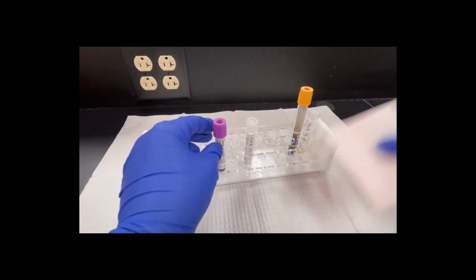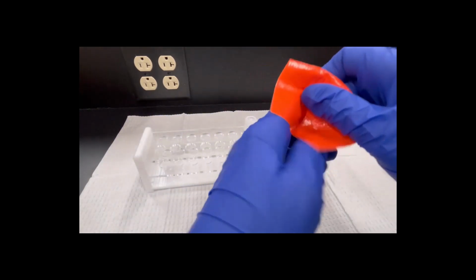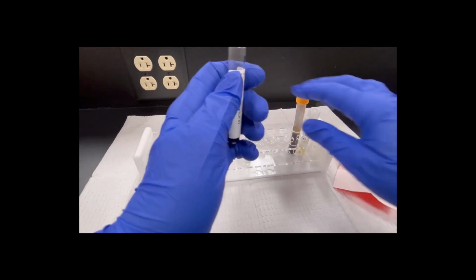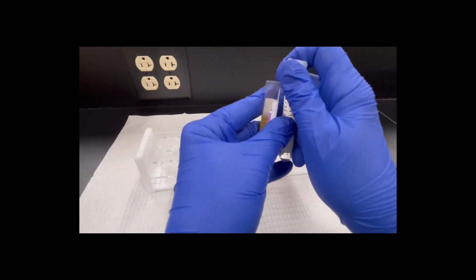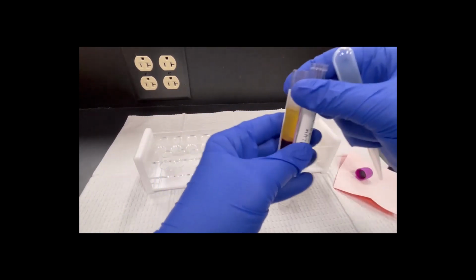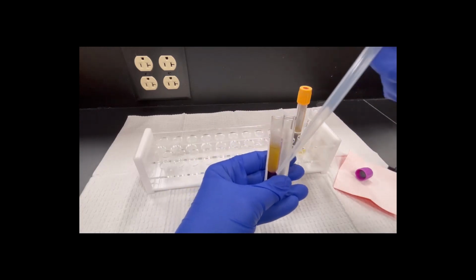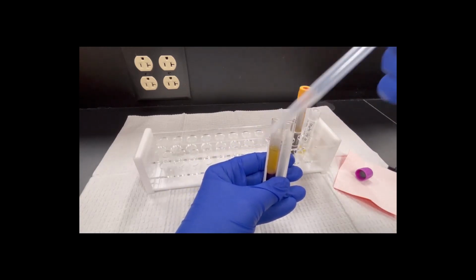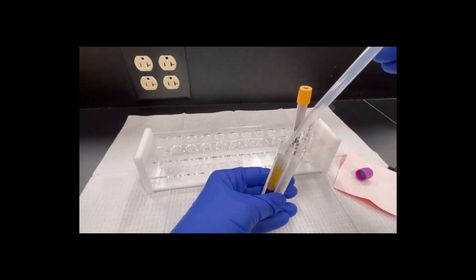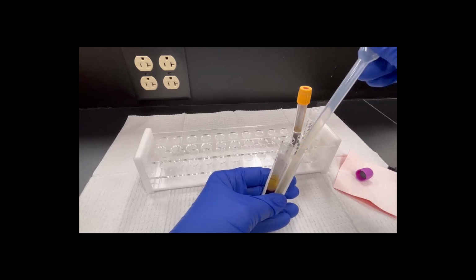I'm going to take my bio wipe. You can use the same bio wipe multiple times over the tube, and I'm going to pop it off. Let it sit right there to the side. Take my white one off. Now, with this one, it's going to be super important to be very careful, because the minute my tip hits those cells and sucks any cells, I have to be done. So, squeeze the bulb, go halfway down, suck it up, and transfer it.